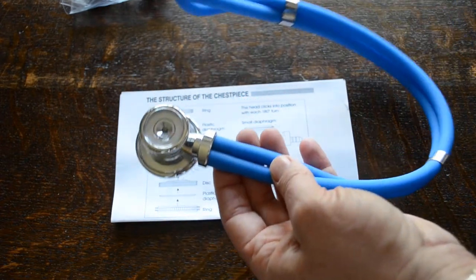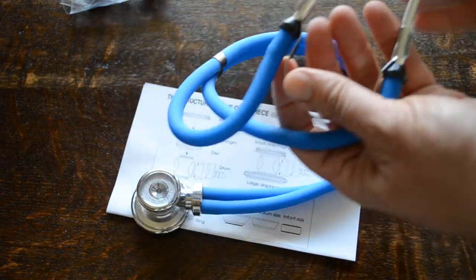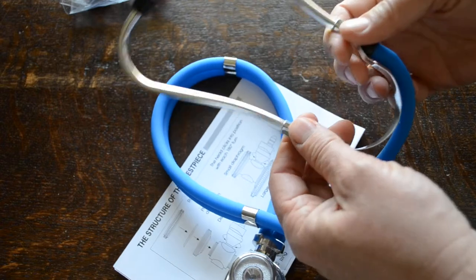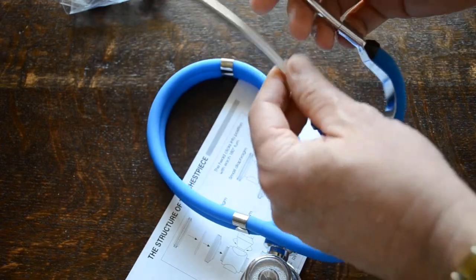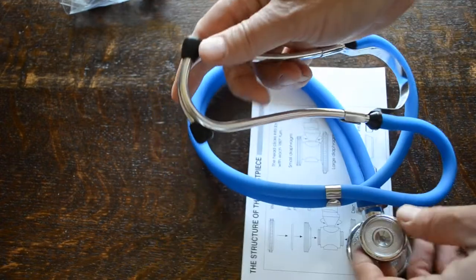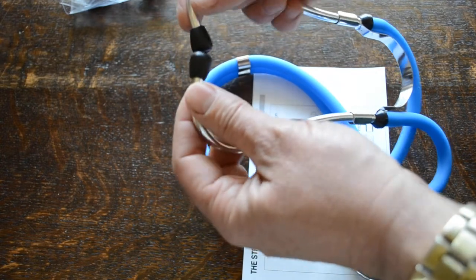This is a good length 58 centimeter dual lumen tube with a very good quality headset. Nicely sprung, not too tight. Light in construction as well, which means it's not going to be too heavy when it's around your neck or in your ears.